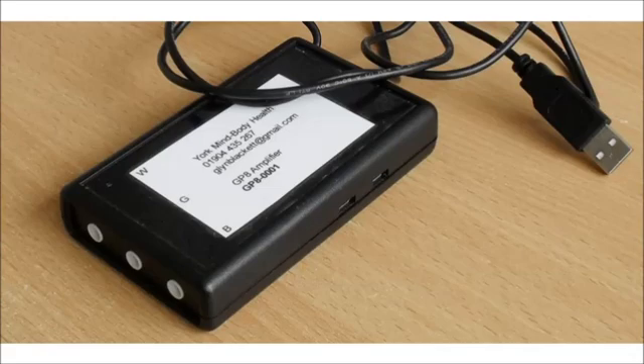The GP8 runs on batteries. EMG is short for electromyography and, as you'll know by now, it's an electrical correlate of muscle tension. It's actually a kind of voltage measured from the skin — a very small voltage measured in microvolts, a microvolt being a millionth of a volt. It's therefore not a trivial thing to measure, and later I'll talk about some of the things that can go wrong.